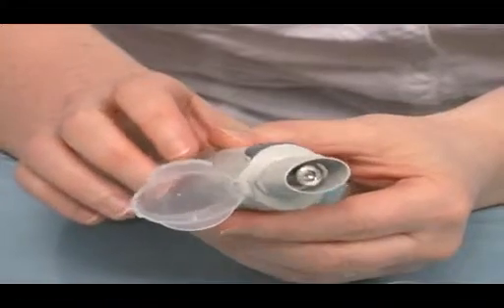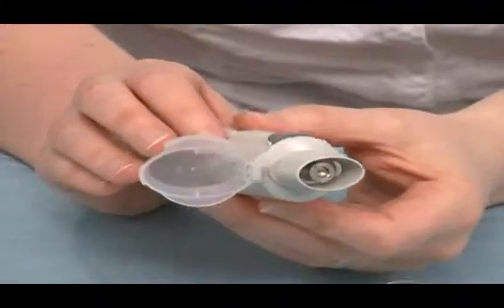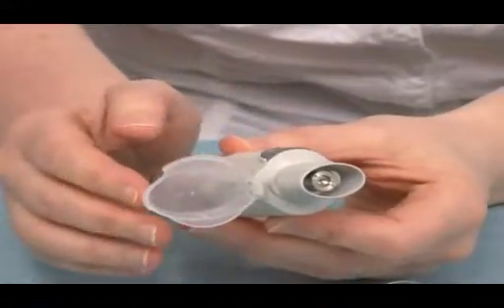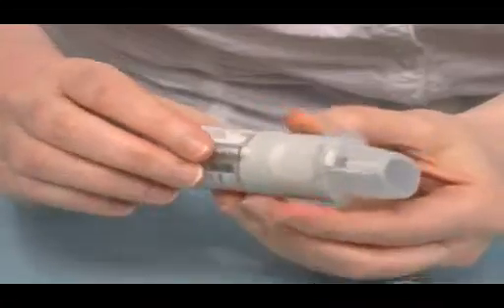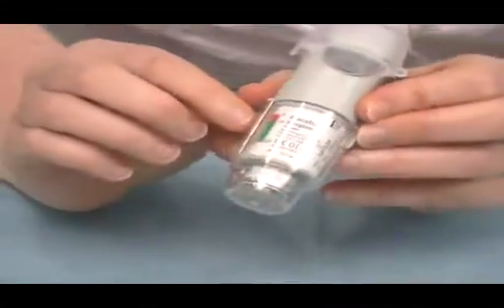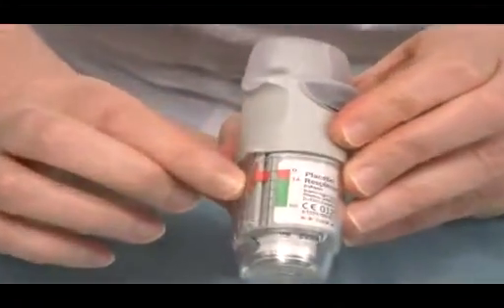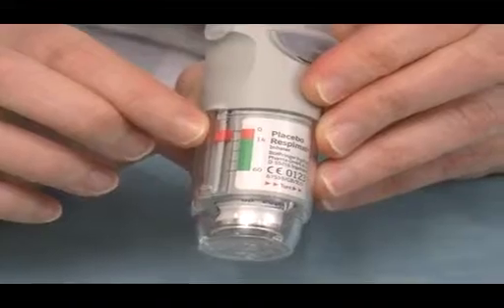Again, they would withdraw the inhaler from their mouth, holding their breath for the count of 10 or as long as they feel comfortable. To take a second dose, they would recover the device and start the process again. There is also a dose counter at the side as a reminder for patients when they are needing to renew their prescription.